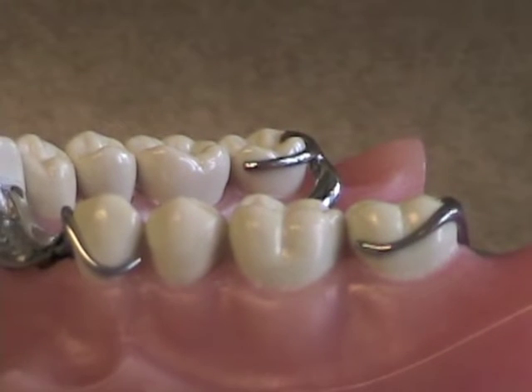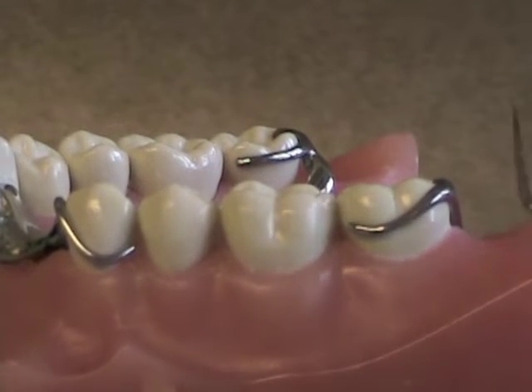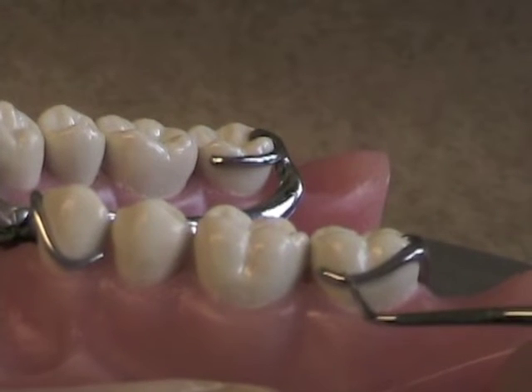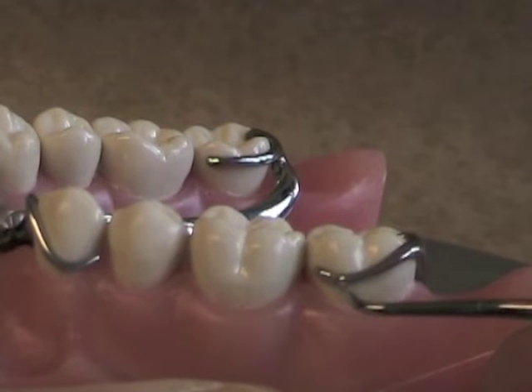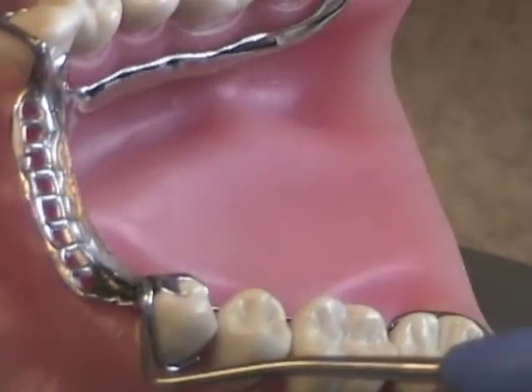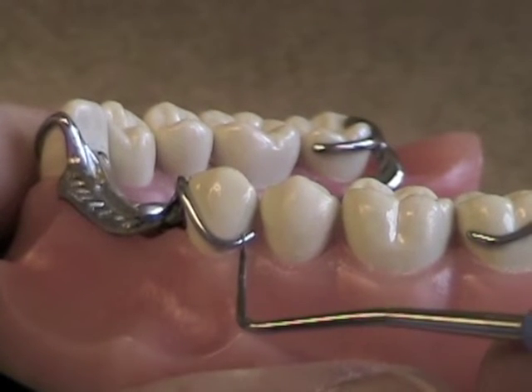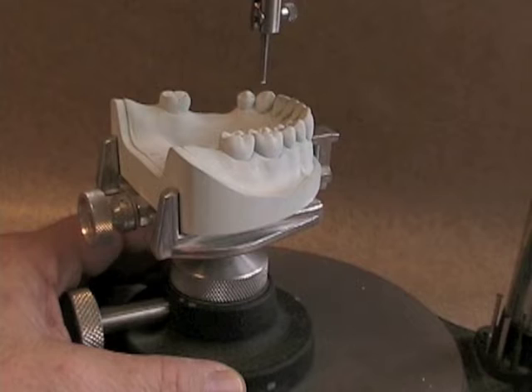The amount of undercut that you place a retentive clasp into is extremely important. The type of material determines how far into an undercut you can place it. Cast metal — like this retentive clasp here, cast as one unit as part of the framework — is less flexible than wrought wire and can only be placed into a .01 inch undercut. If you place it into a .02 inch undercut, it will bend permanently and will not flex back, and you'll lose your retention. Wrought wire, which bends and solders onto the framework, is intrinsically more flexible due to its round shape and different grain structure. Because it flexes more, you can put it into a .02 inch undercut to maximize retention without exceeding the proportional limit of the clasp.